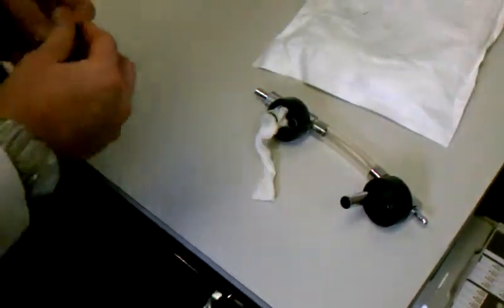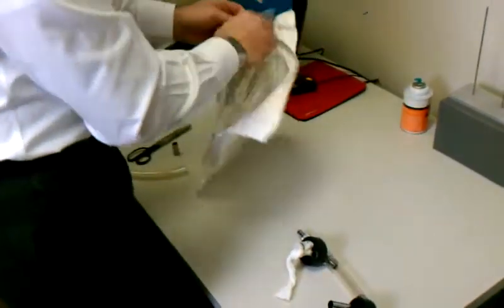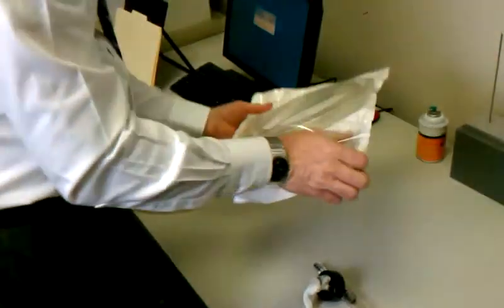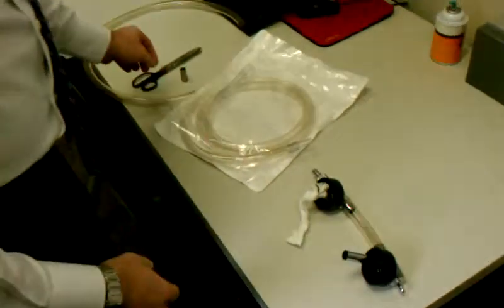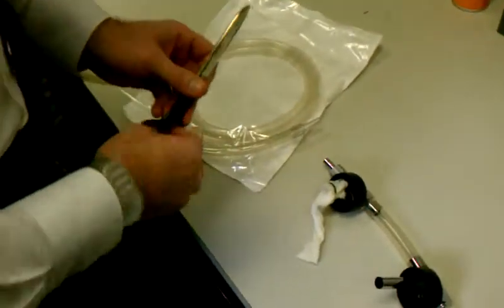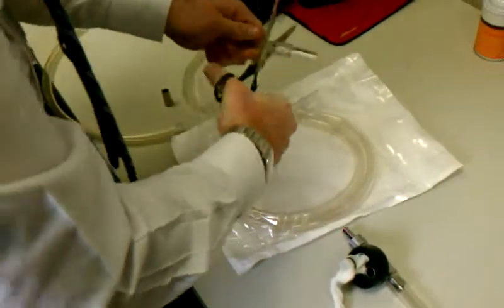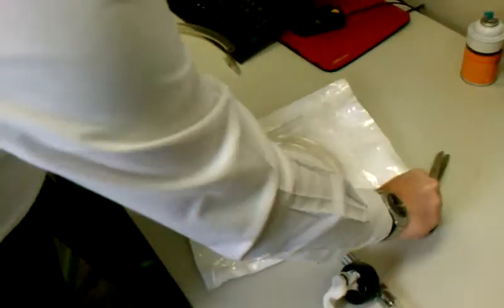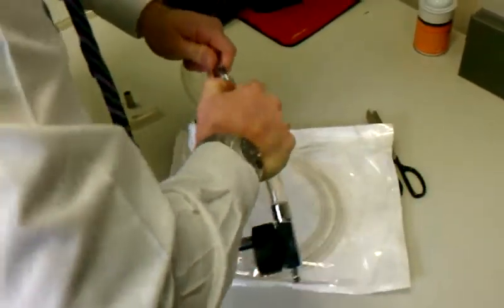The next thing you have to do is adapt this tubing set — again, it's the 23116 — so that it fits. I'm going to show you two ways to do this. First, if you wanted to do this every time, you simply just need to cut this tubing here with a tubing cutter or scissors, and then this just attaches onto the end and you're ready to go.